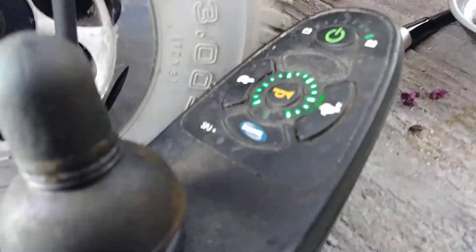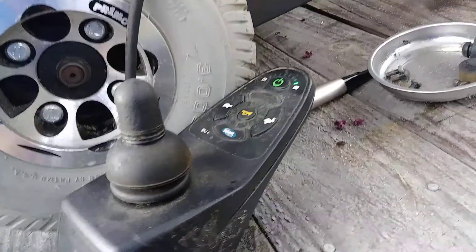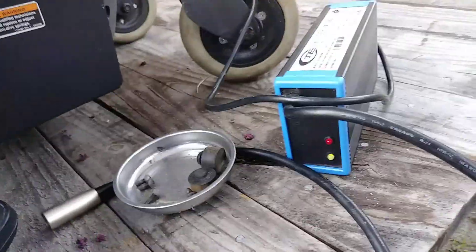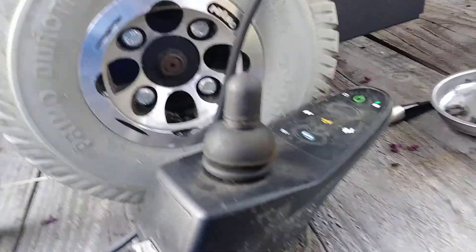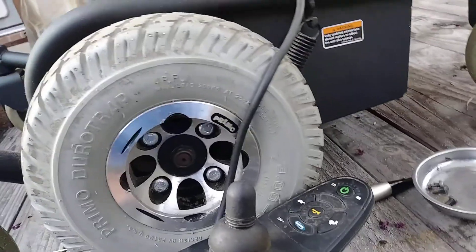She's got power but she's also got a wrench idiot light coming on, which probably means the batteries are shot — like the lady told me. Going through some testing modes, had this hooked up probably eight or nine hours. It came up with an orange light saying it was still charging, but at least the unit's powering up and getting some kind of charge.